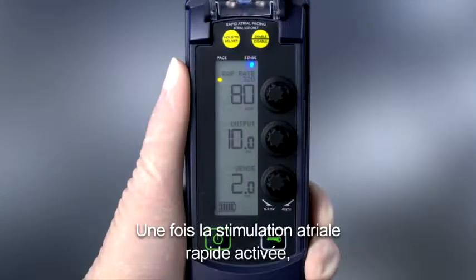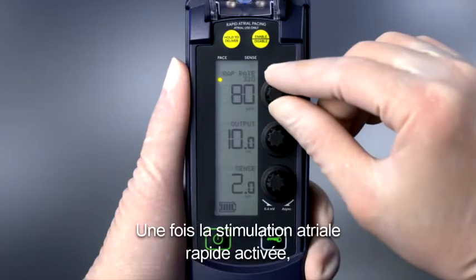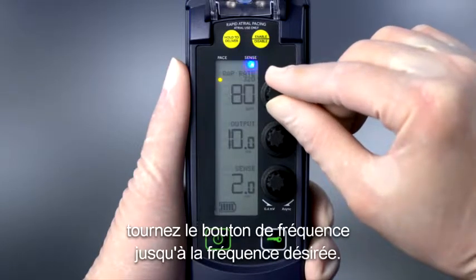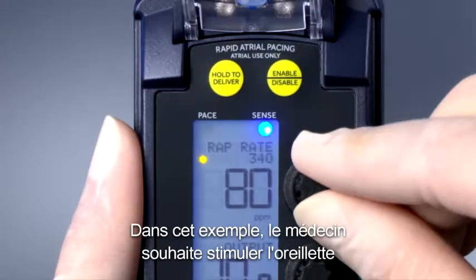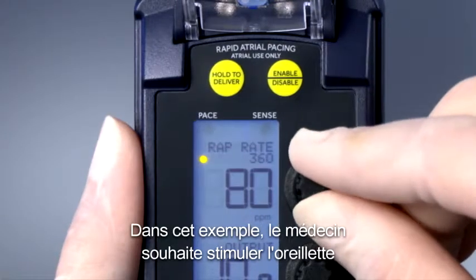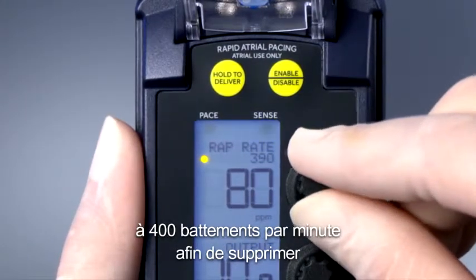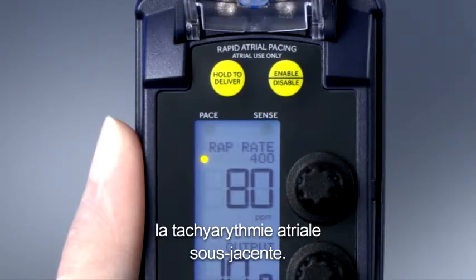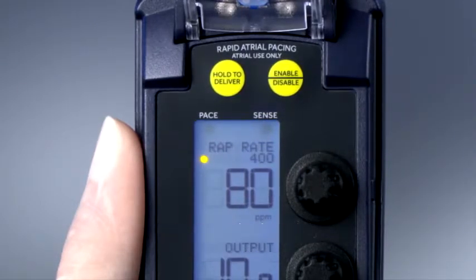Once rapid atrial pacing is enabled, rotate the rate dial to the desired rate. In this example, the physician wishes to pace the atrium at 400 paces per minute in an attempt to terminate the underlying atrial tachyarrhythmia.